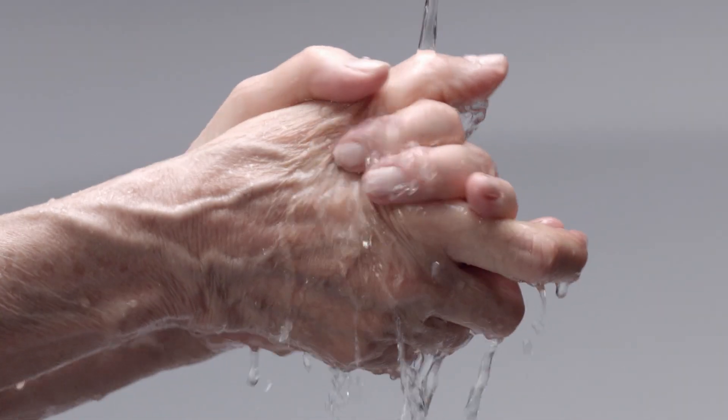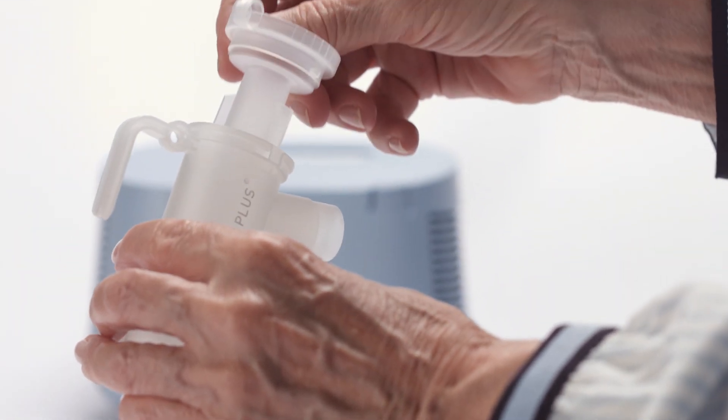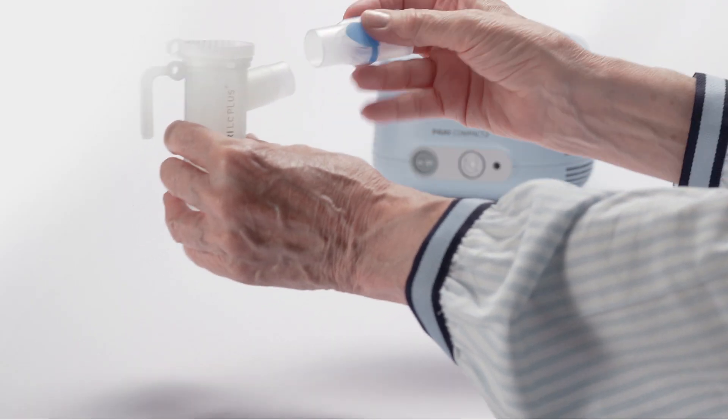Wash your hands thoroughly before each inhalation session. Assemble the nebulizer lower section, the nozzle insert and the mouthpiece.